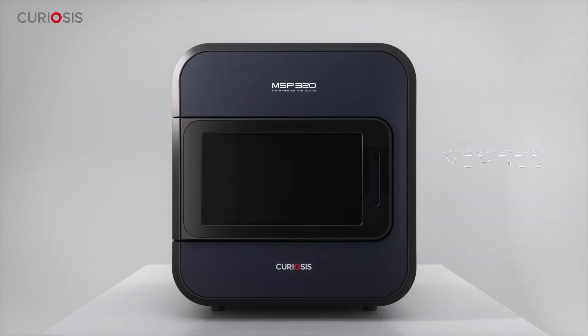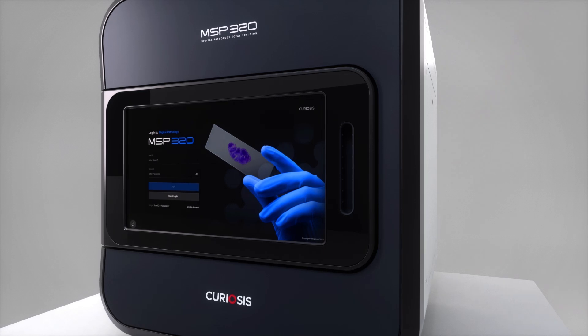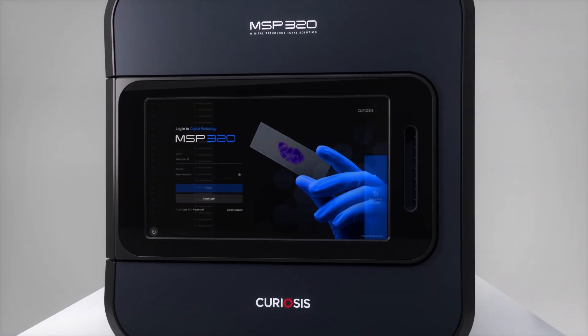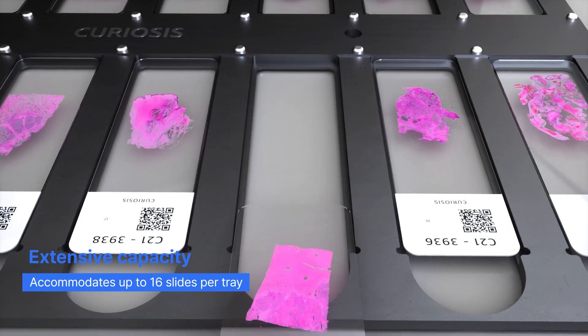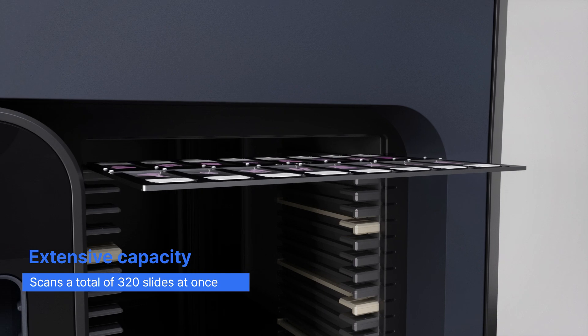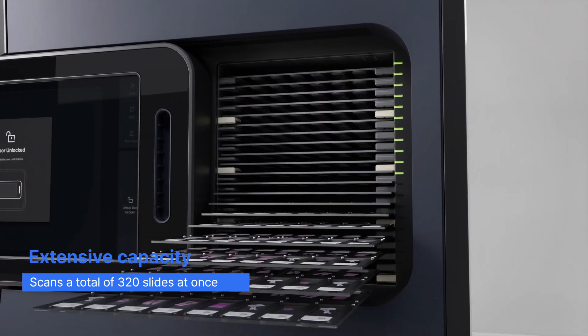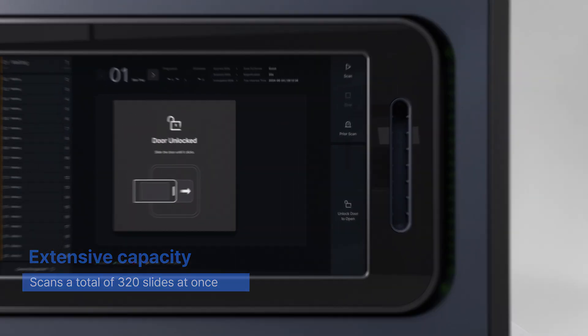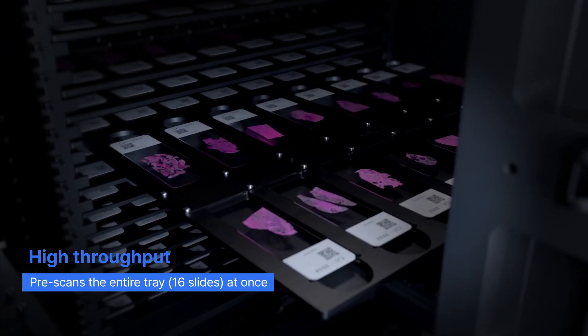Digital pathology total solution MSP320. The MSP320 is an innovative digital slide scanner that streamlines pathology workflows. It scans up to 320 slides with unmatched resolution, improving diagnostic precision, treatment outcomes, and overall patient care.